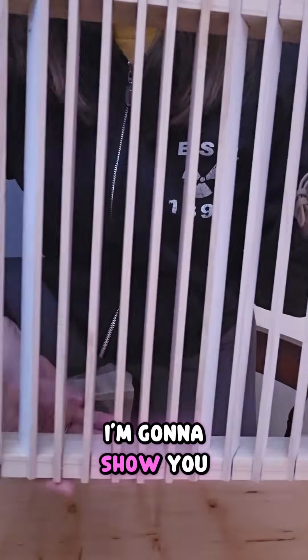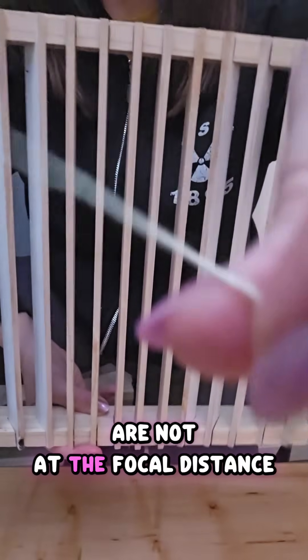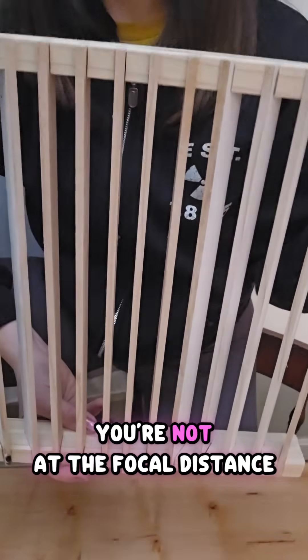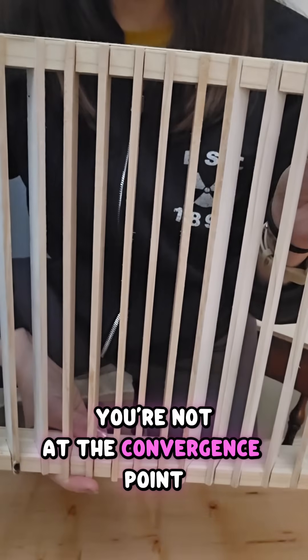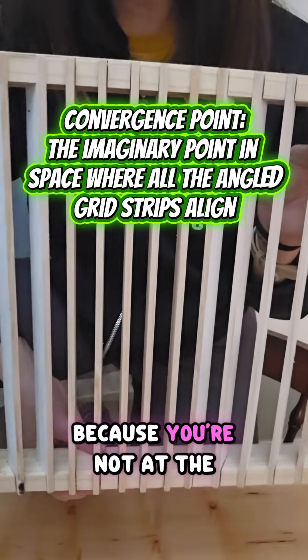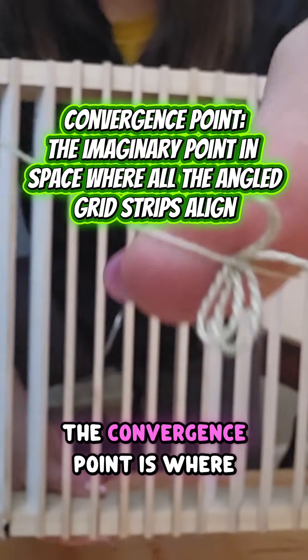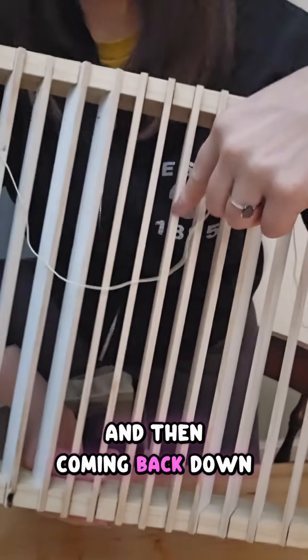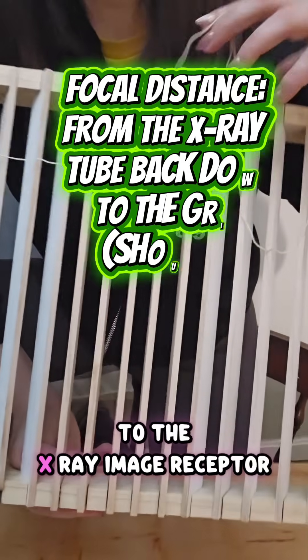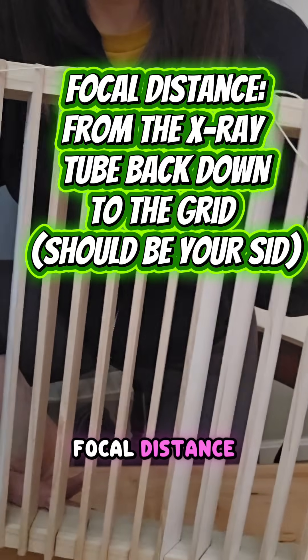The first grid error is what happens if you are not at the focal distance you're supposed to be at. If you're not at the focal distance, you're not at the convergence point. All of these errors happen because you're not at the convergence point. The convergence point is where all of the grid strips meet in space, and then coming back down to the x-ray image receptor is known as your focal distance.